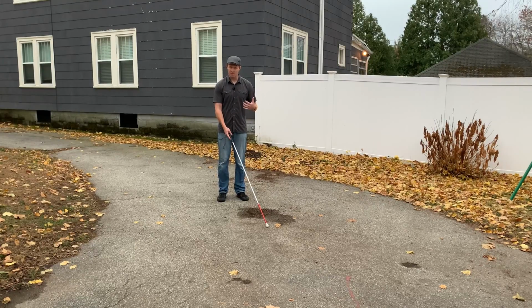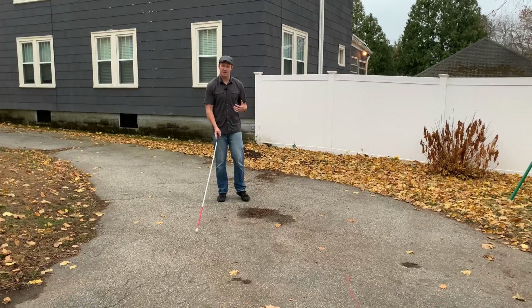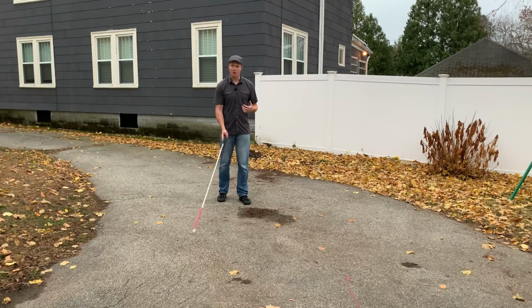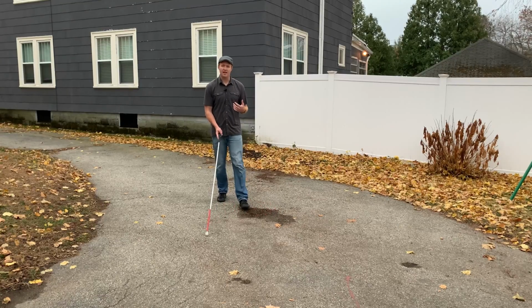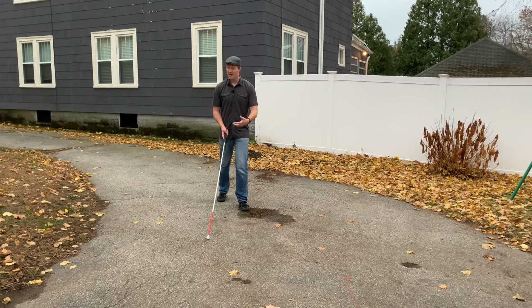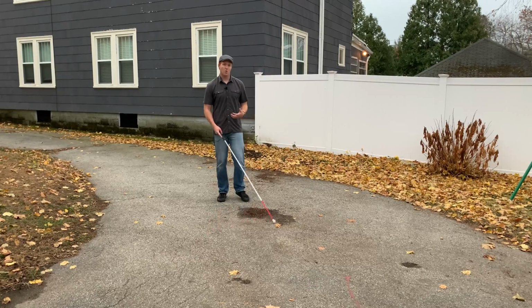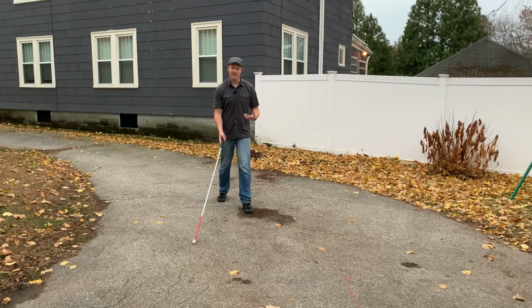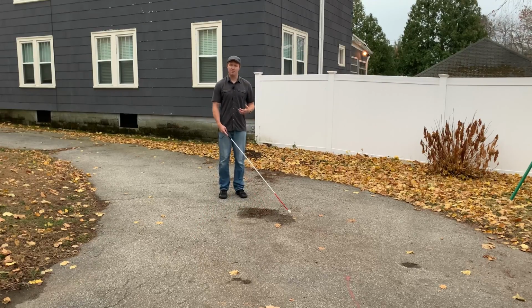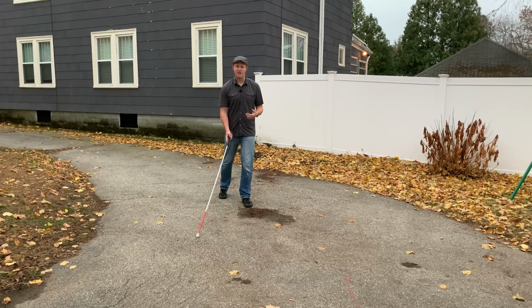Touch and slide is pretty simple. Normally when you're using 2-point touch, you're just tapping left and right, back and forth. But with touch and slide, every time you tap, you let the cane slide forward on the ground. I like to say 4 or 5 inches. Right now I am taking a step forward with my left foot, my cane is going right, and when it taps the floor at 1 o'clock, instead of just a quick tap and then heading back to the other side, I'm letting it go forward about 4 or 5 inches. I'll demonstrate that again. I'm stepping forward with my left foot, cane tip hits the right, slides forward.